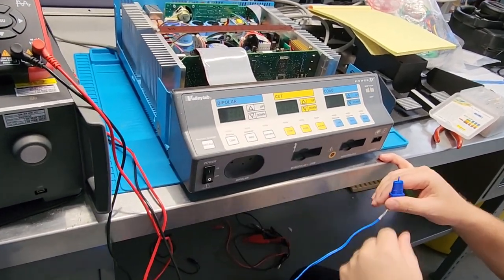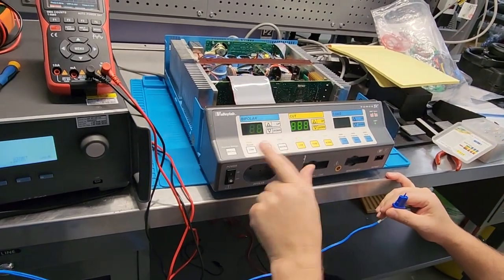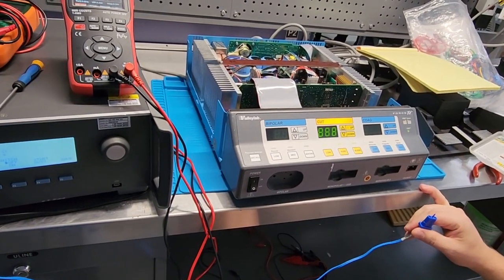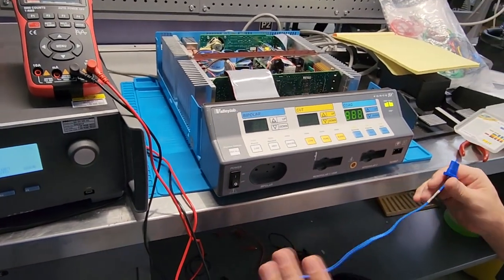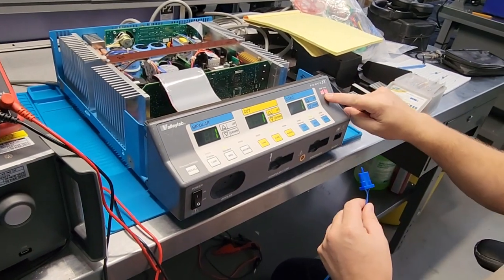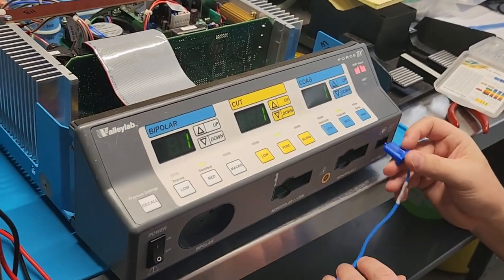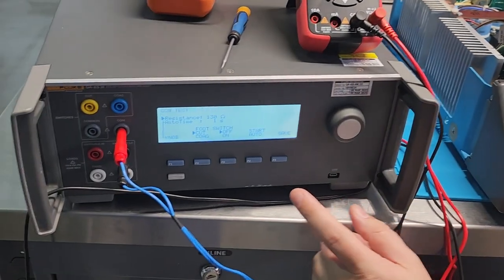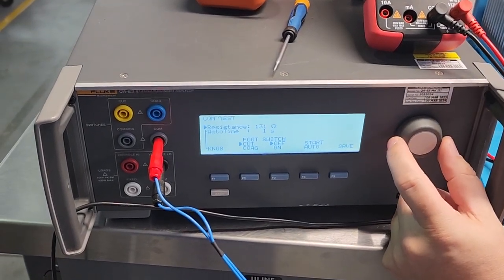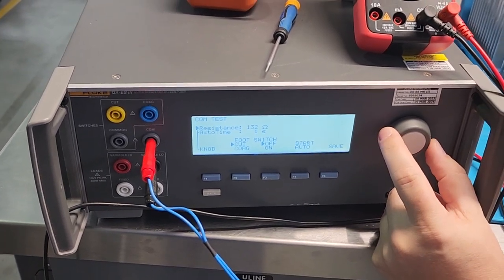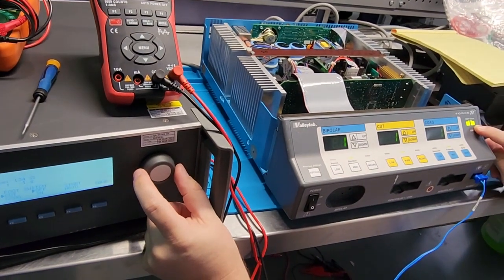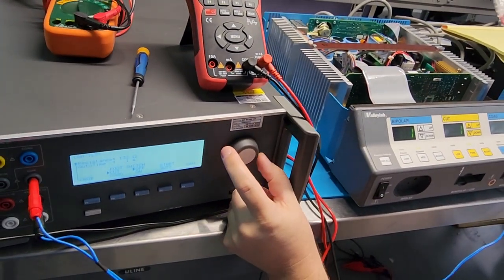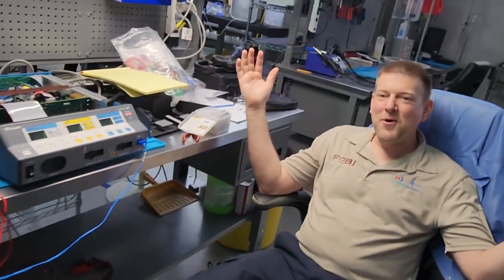I'm going to turn it on. It's going to go through its self check. And hopefully it doesn't error code out because that would be my luck. All right, here we go. So our REM circuit right here, it's going to be looking for some sort of input at 130 ohms showing green. So I'm going to very slowly turn it up. 131, 132, 133, 134, 135, 135 ohms.